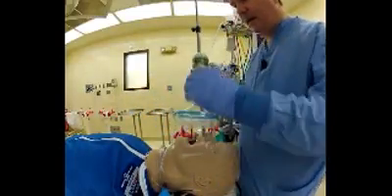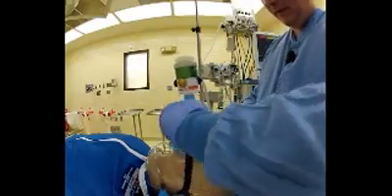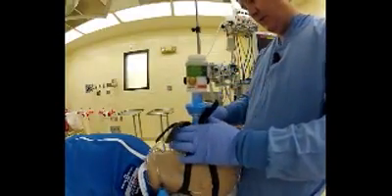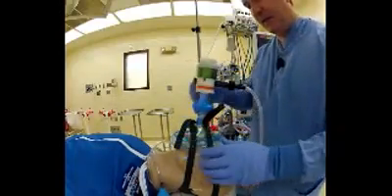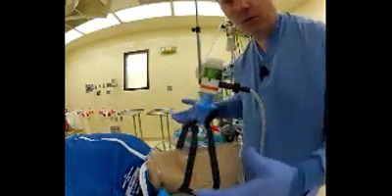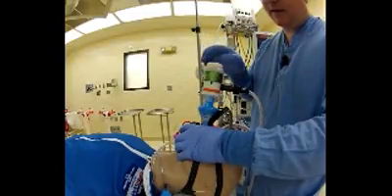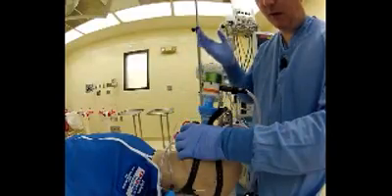Let's start out by ventilating our mannequin with a mask. I'm going to turn on the inhalator mode and apply my mask over the nose and mouth using some mask straps. We use these in anesthesia, and if there's anything that anyone in pre-hospital medicine or emergency medicine can learn from us, it's that these are inexpensive and very useful. I'm going to set my pressure release initially to 15 centimeters of water and turn on the automatic mode. I'm going to ventilate her, going up to 25 centimeters of water for a more impressive chest rise and cycling.